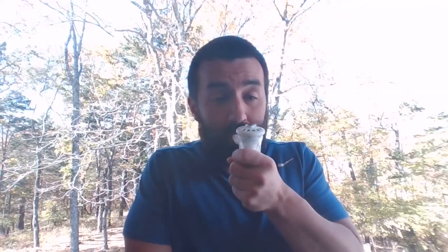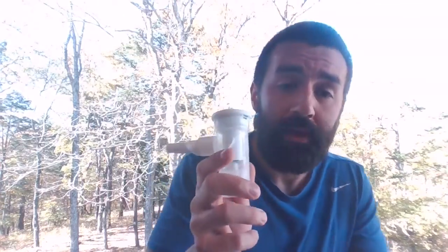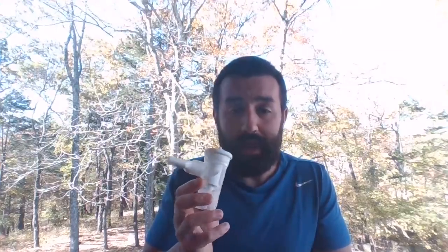Okay, so I could just breathe in and out. You can see my little exhalation valve opening and closing. When these things first came out, we were going, hey, let them breathe on it for 5 minutes and they're done. I'll usually let my patient get their whole medication, but within 5 minutes, they are getting a dose that's comparable to these others. We still use a fill volume of 3 mils, generally, with all these, okay?